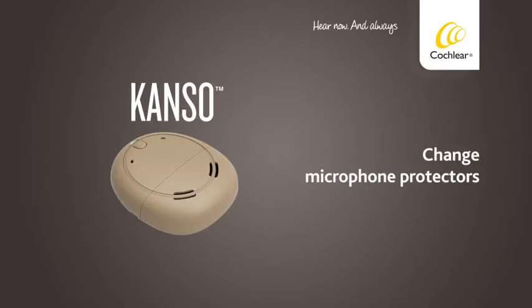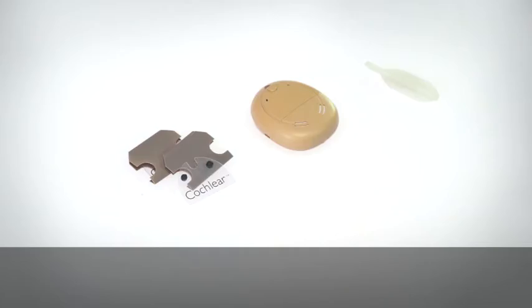Change microphone protectors. Replace your microphone protectors every three months or if they look dirty or if you notice any loss in sound quality. Always replace both microphone protectors at the same time.